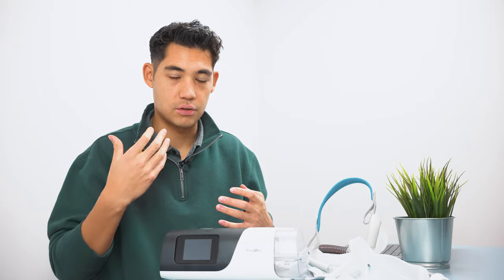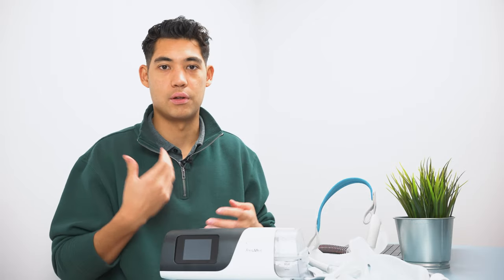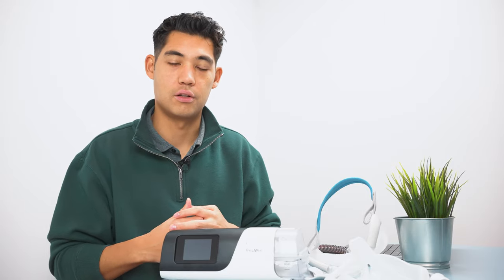With the humidity, it's also important because dry air, really dry air will just cause inflammation in your nasal passage. And that will also make you want to breathe out of your mouth. So just make sure that you have a good, warm, humid air going into your lungs.